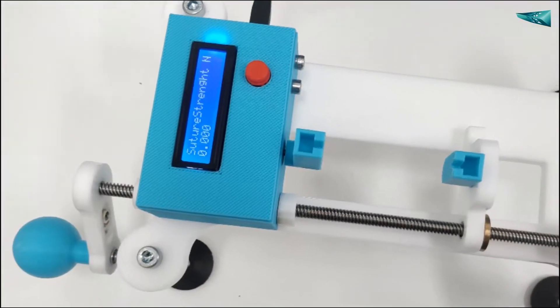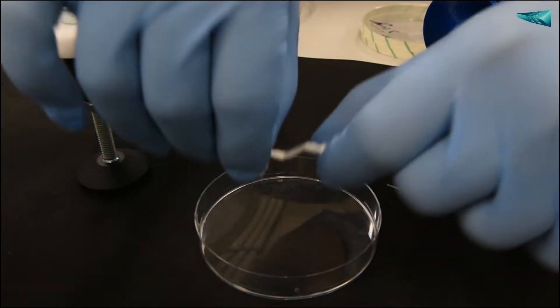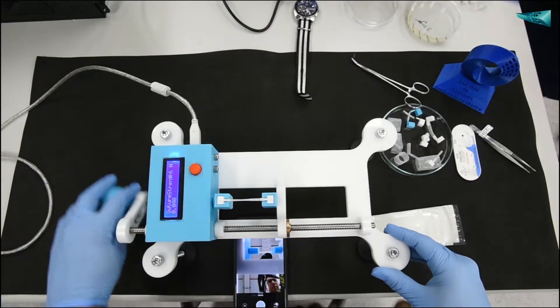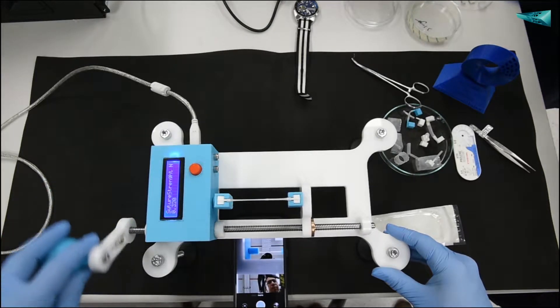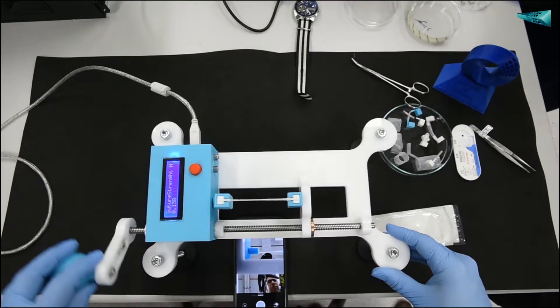Our patented first product consists of easy-to-use mounts for the quick installation of your tissue analogues. With its integrated force gauge, you can now measure the strength of your suture and evaluate your technique. We also equipped our device with an adjustable sample holder to pretension the tissue analogues to simulate different clinical scenarios.